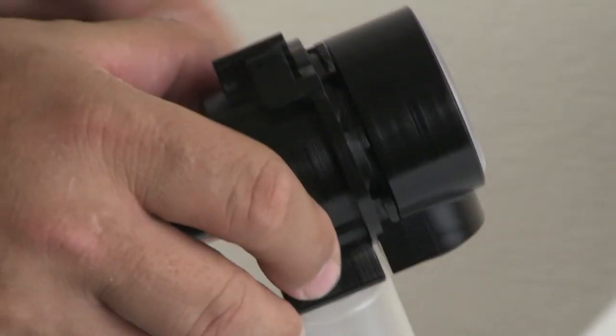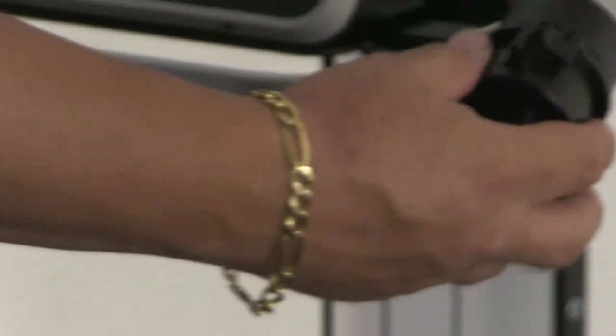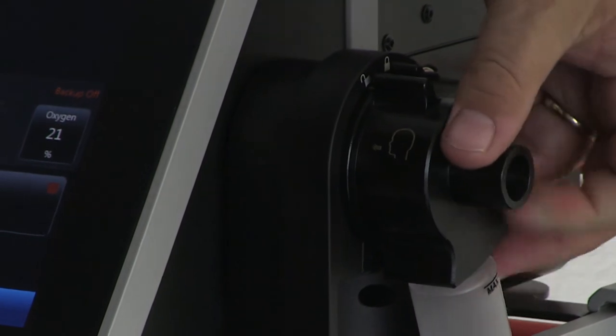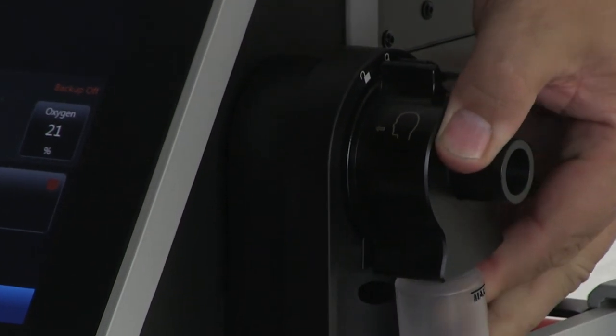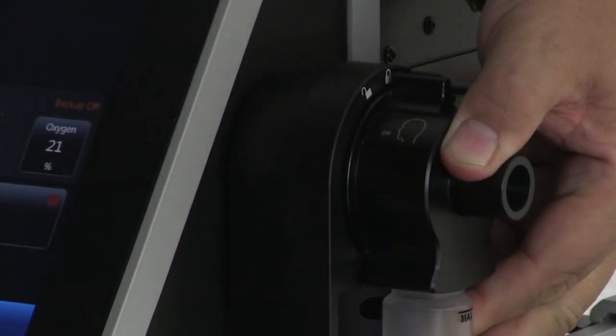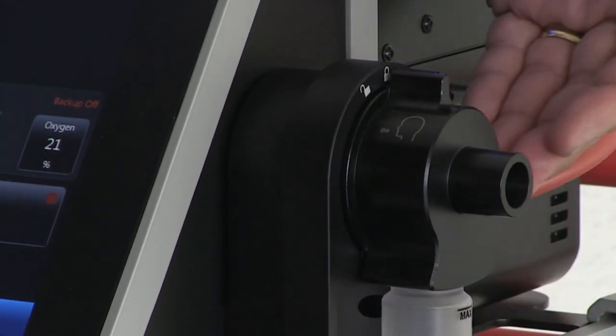Take the valve back to the Bella Vista, position it in the tray. You just have to rotate this housing backwards till it clips in, and then rotate the housing forward and you'll hear a loud click. The click indicates that this valve is locked back in.